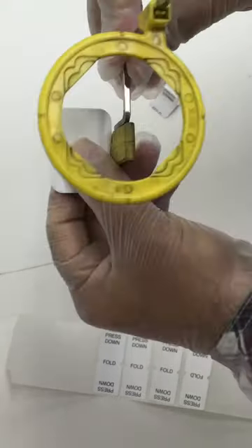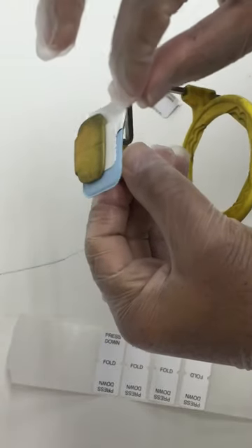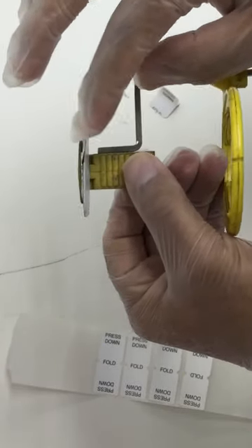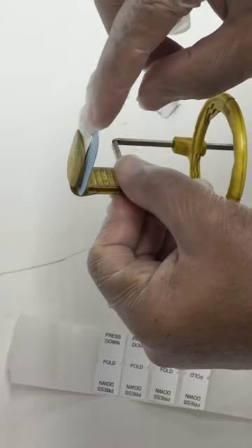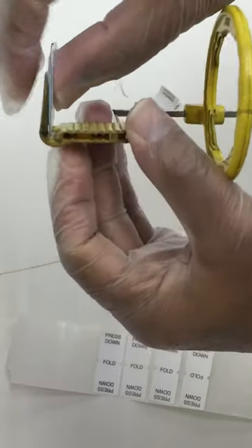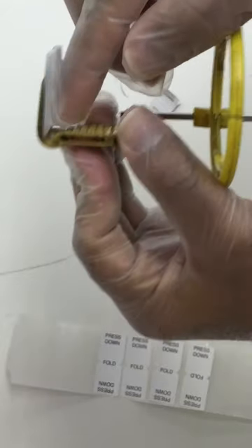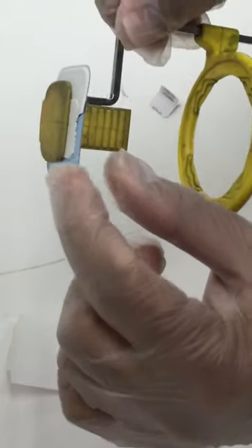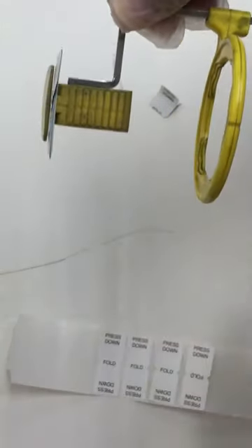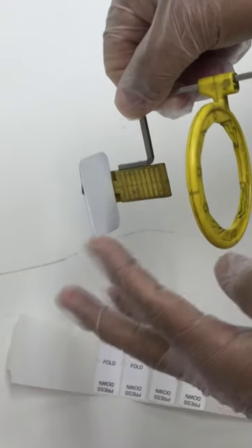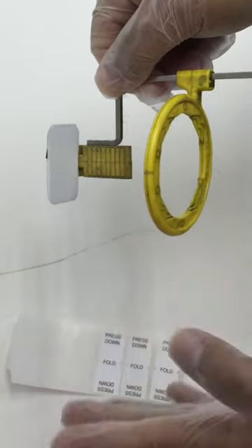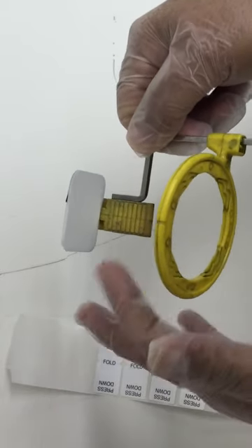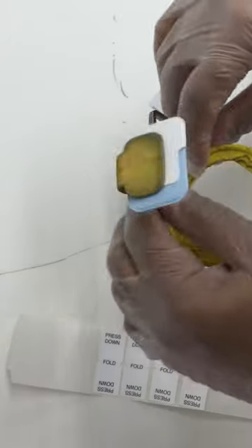In this way it will give some support to the film, and even if it's not extending into the slot, it will be more stable with this sticky adhesive tab. You can also use that for the anterior film holder, the blue one, as well. Thank you.